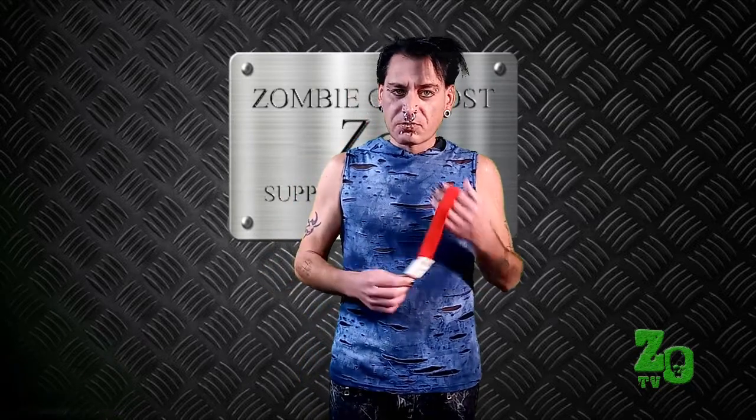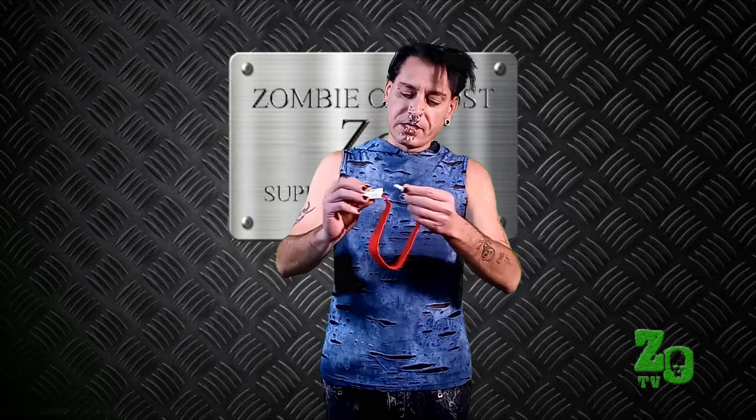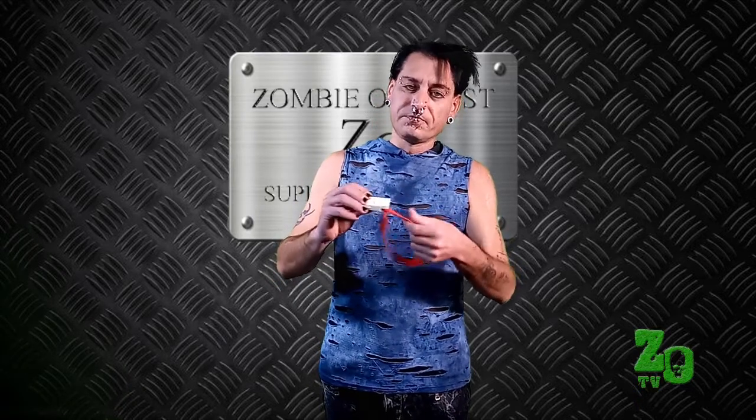You've probably seen these on the shelf, especially if you're watching this video, and I just want to show you a little bit about it. First of all, it works kind of like a seatbelt works. It's got a little tab that locks in there, and I keep it in my medical kit fully extended with the hoop as large as it gets, ready to go.